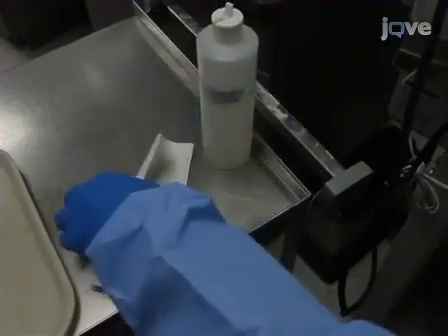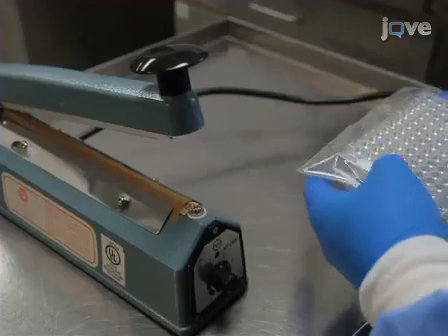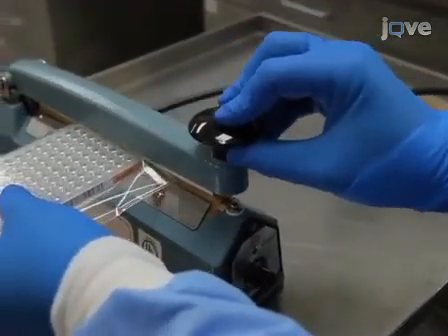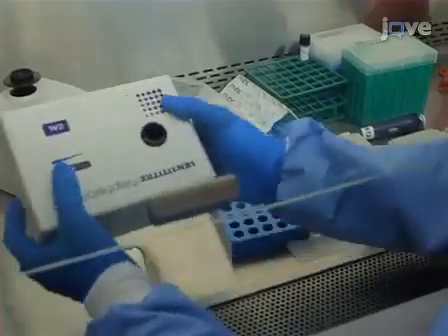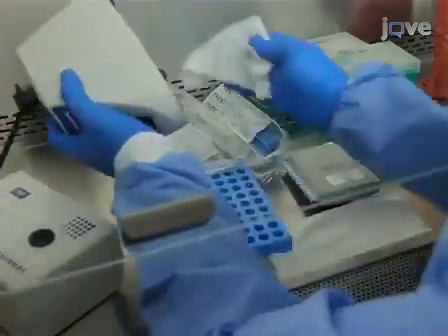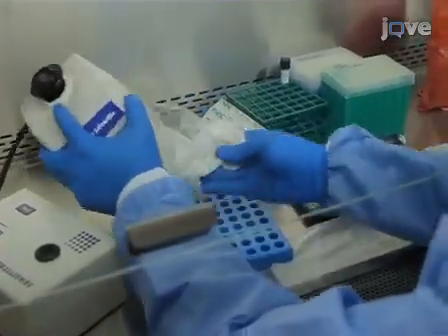Disinfect the microtiter plate by wiping it with a paper towel soaked with a tuberculosidal disinfectant. Then place the microtiter plate in a plastic bag and close it with a heat seal. Finally, disinfect all materials, including the nephelometer, vortexer, plates, and tubes, by wiping them with a tuberculosidal disinfectant.